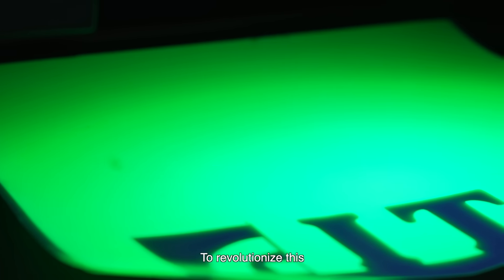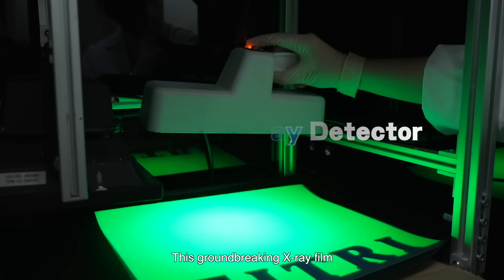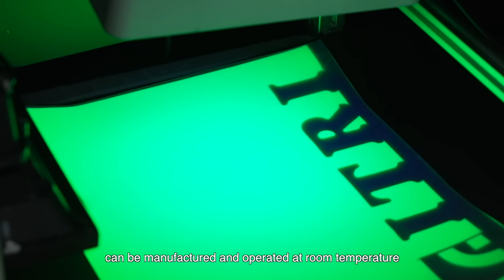X-rays play a vital role in both medicine and industrial manufacturing, ensuring product quality and competitiveness in sectors like semiconductors.